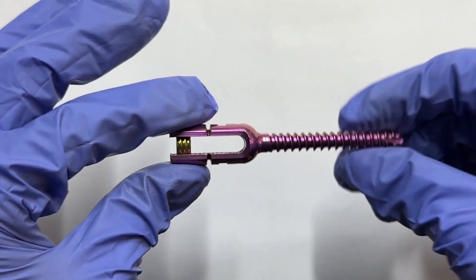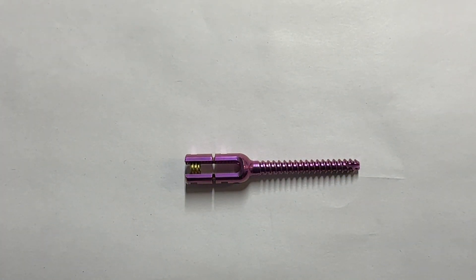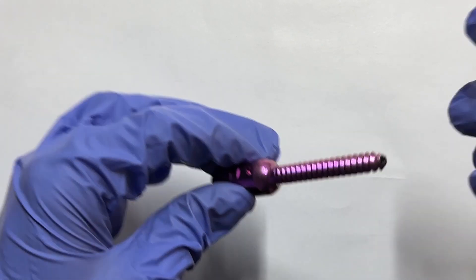Designed with precision, pedicle screws serve three pivotal purposes. Firstly, they enhance spine stability, providing a robust anchor for vertebrae.